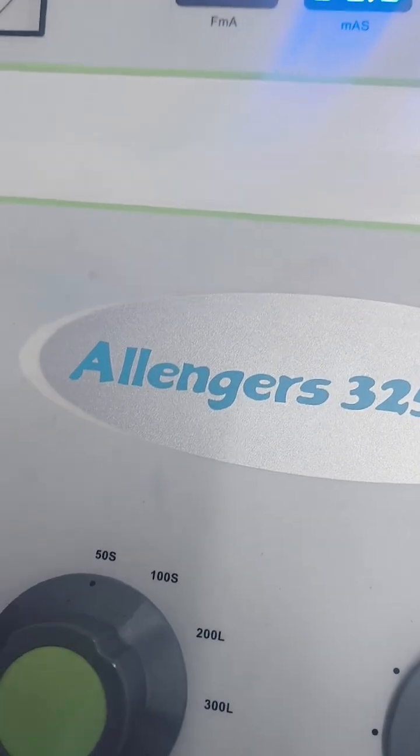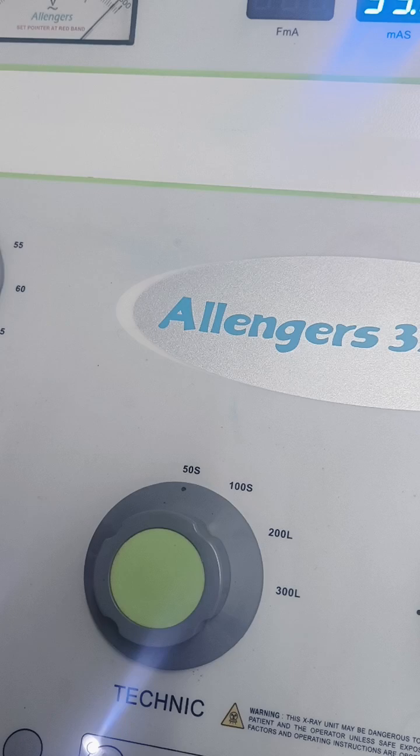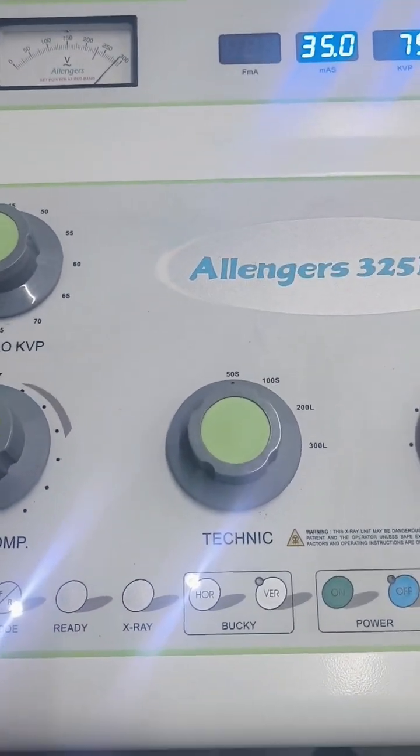Hey guys, today these are video performances made by first year students in radiography. So today it's basically the basics of x-ray machines. Welcome to our radiology department. First of all, we will introduce the control panel in x-ray machines.